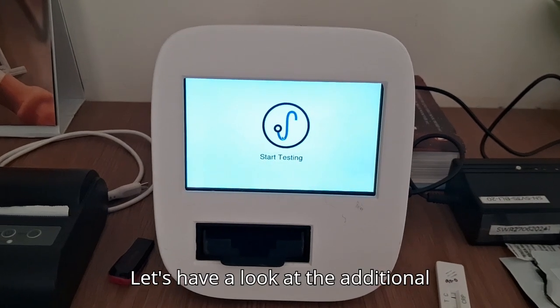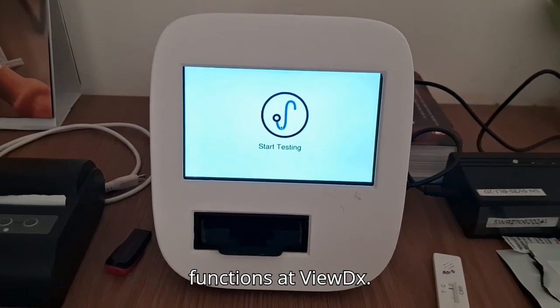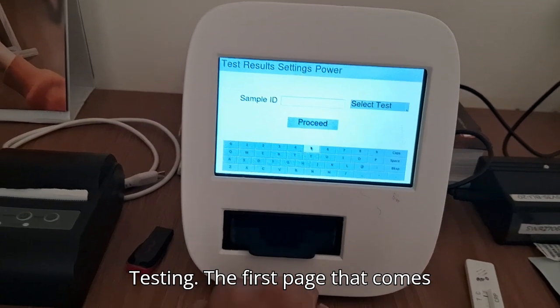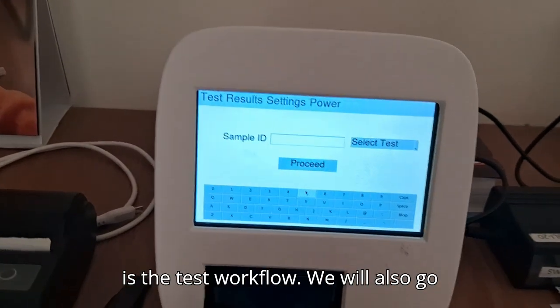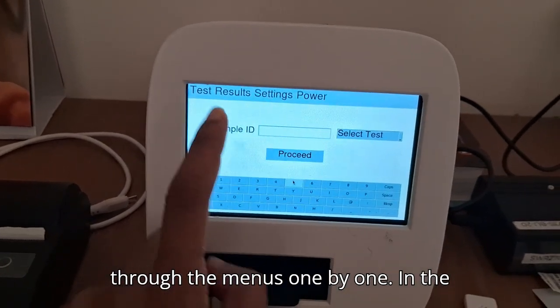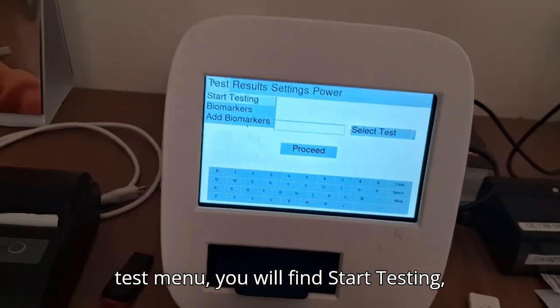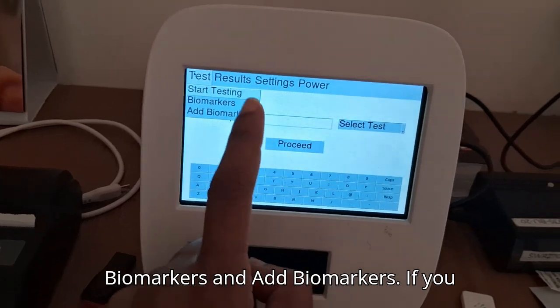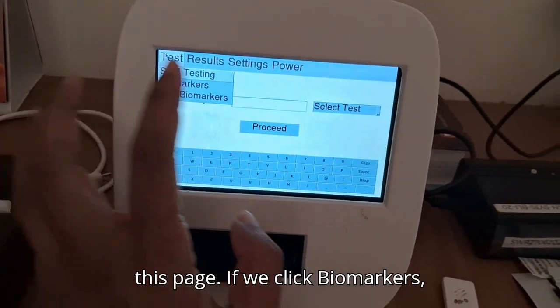Let's have a look at the additional functions at ViewDx. So to enter the application, click Start Testing. The first page that comes is the test workflow. We will also go through the menus one by one. In the test menu, you would find Start Testing, Biomarkers and Add Biomarkers. If you click Start Testing, we'll come back on this page.